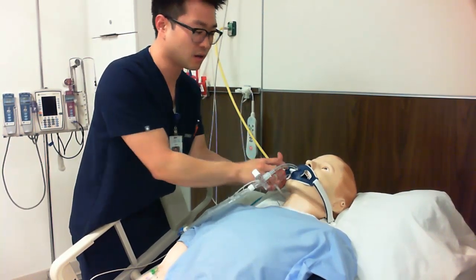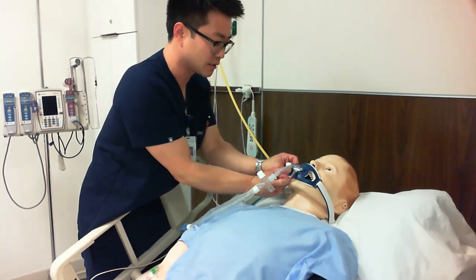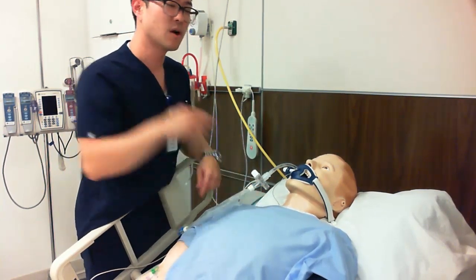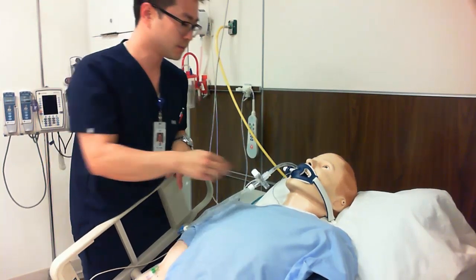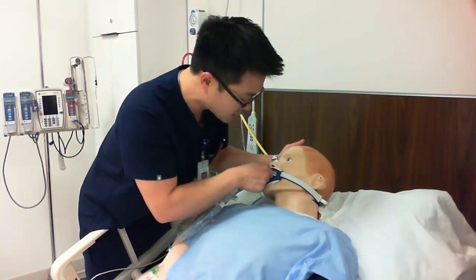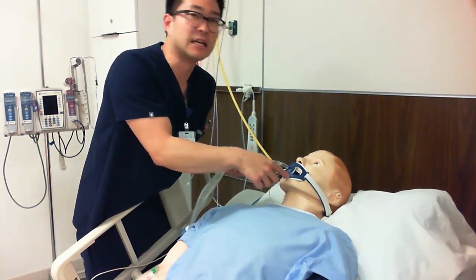We have to make sure we call the RT, call our doctor, let them know what the situation is, and then they'll give us orders and allow the RTs or the doctor themselves to reposition this tubing. And again, we also want to make sure we get a repeat chest x-ray as always, just to confirm where the end of this tube is in relation to our carina. Second part of that: like I said, it was 20 at the anchoring device, and in reality, it's about 18 at the lip line. So when I give a report, I'm going to say your ET tube is measuring 18 at the lip line.